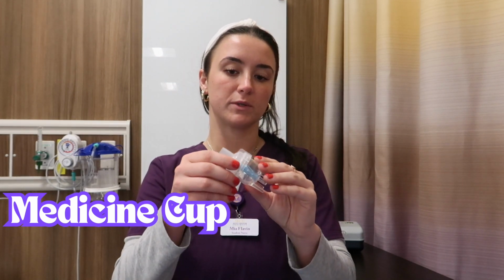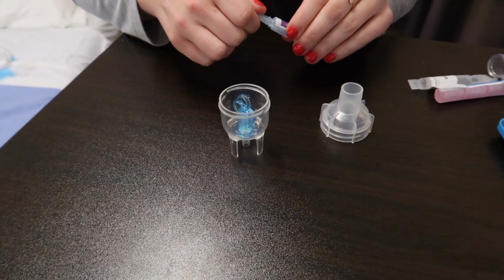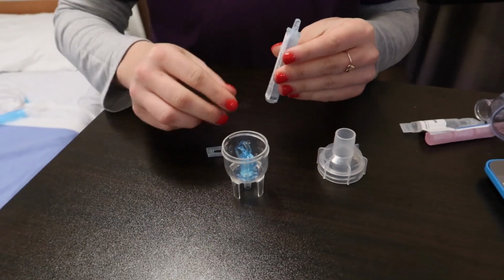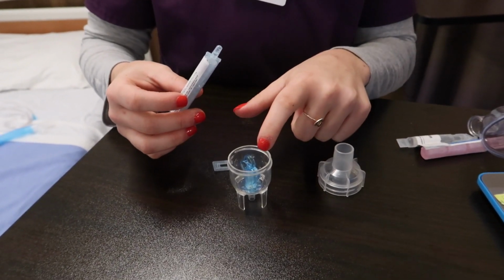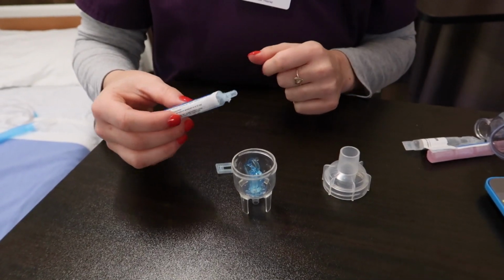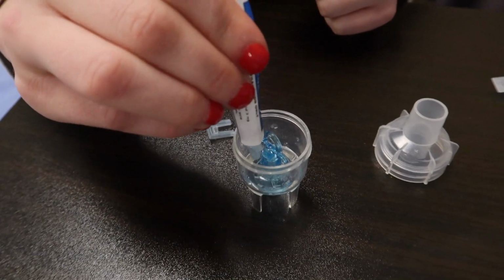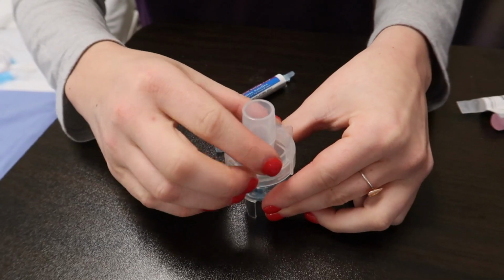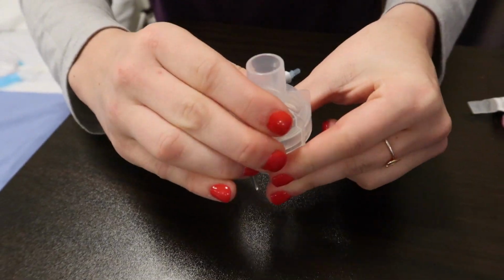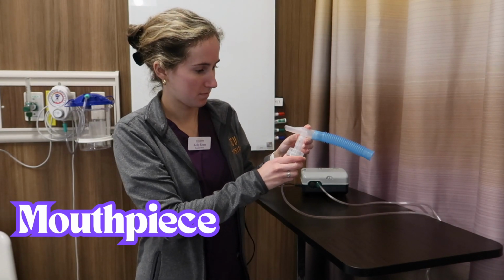To open the cup, twist the top off. To open the medication, twist the perforated edge of the ampule. Squeeze the medication into the cup in the space around the centerpiece and screw the cap back onto the cup. The mouthpiece attaches to the medicine cup that is attached to the nebulizer.